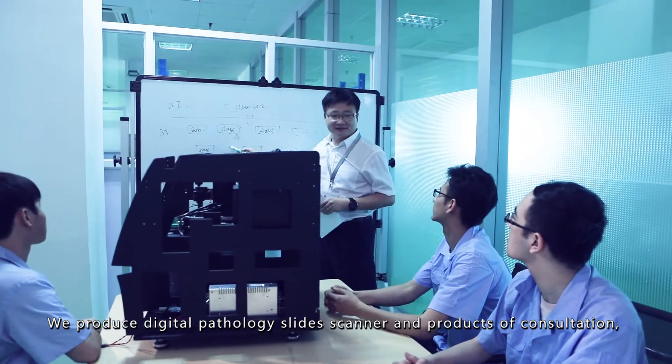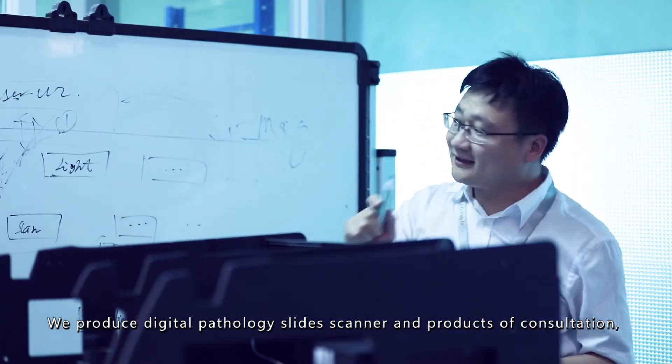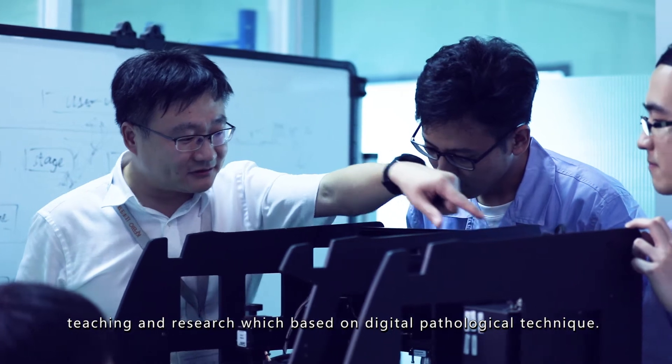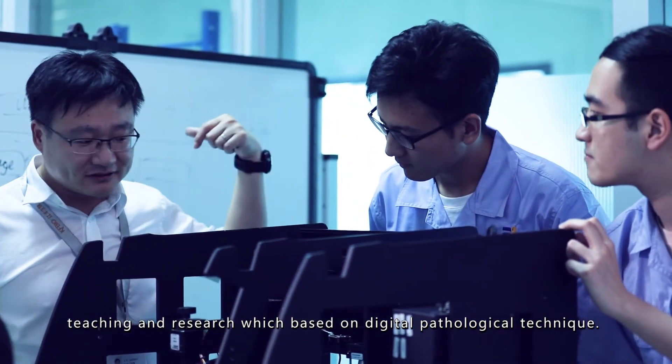We produce Digital Pathology Slide Scanner and products of consultation, teaching and research which are based on digital pathological technique.